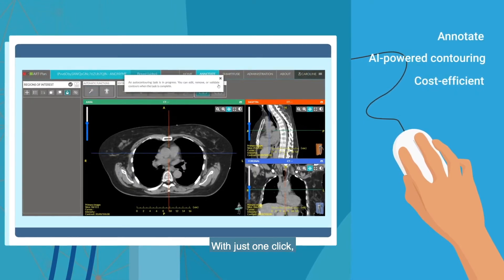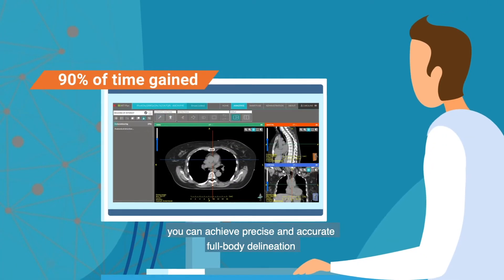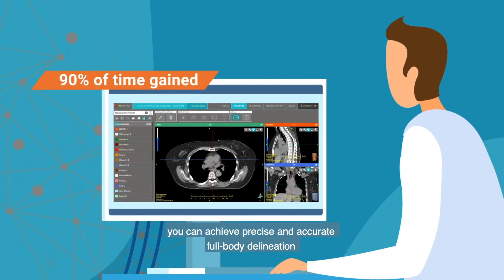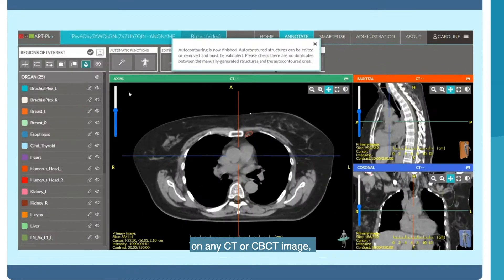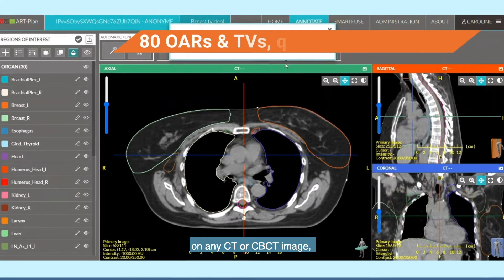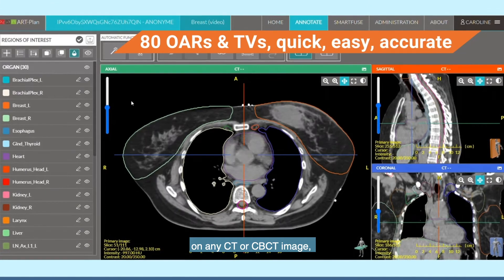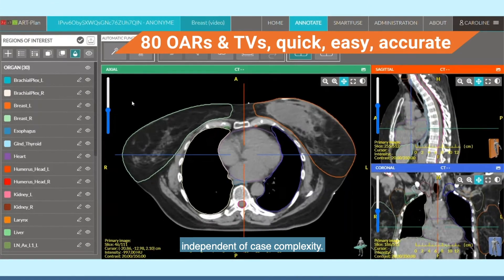With just one click and in two minutes, you can achieve precise and accurate full-body delineation on any CT or CBCT image, independent of case complexity.